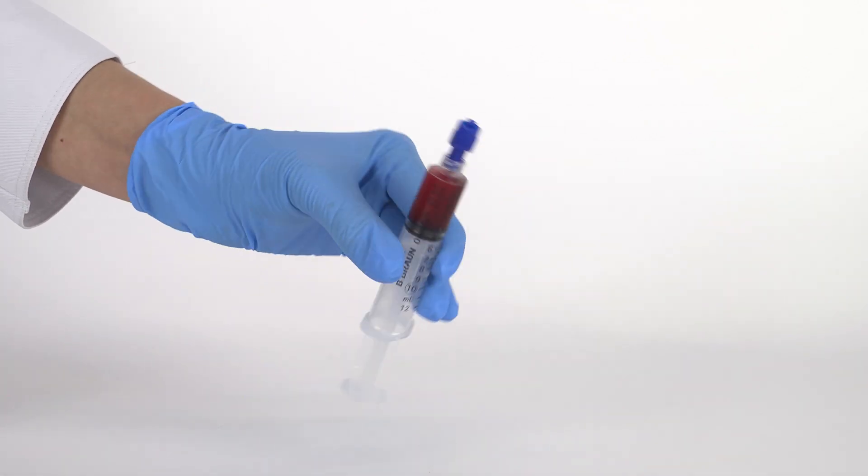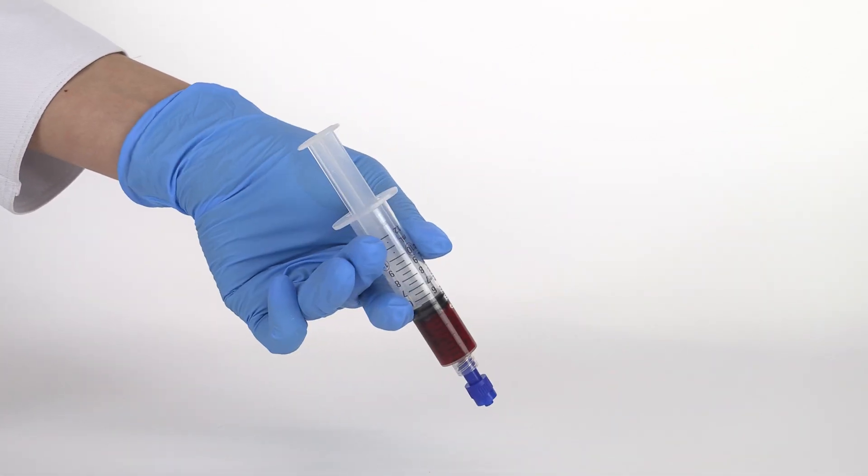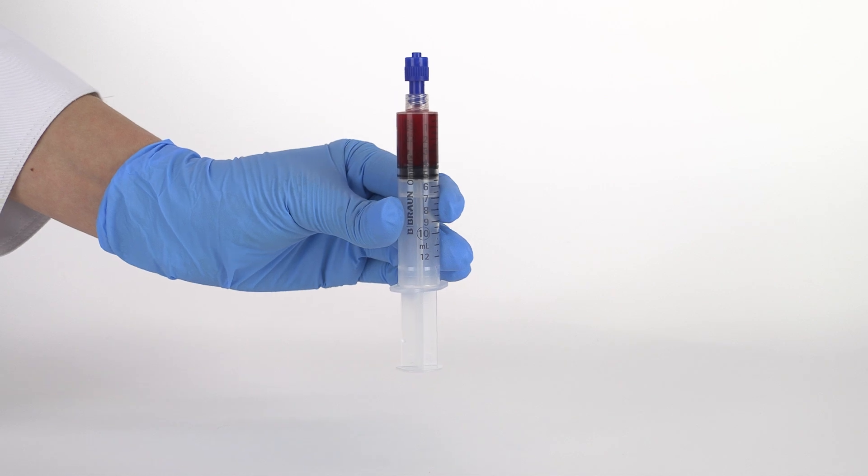This concludes our processing video for Sight's Absolute PRP Concentrating System.